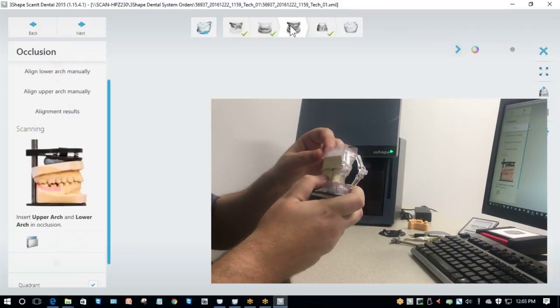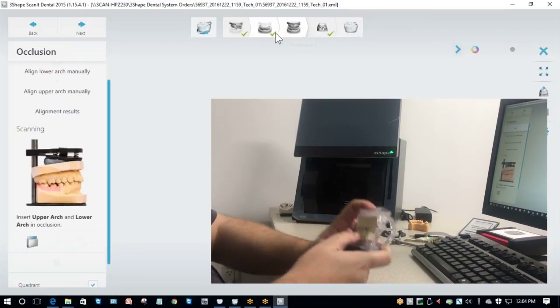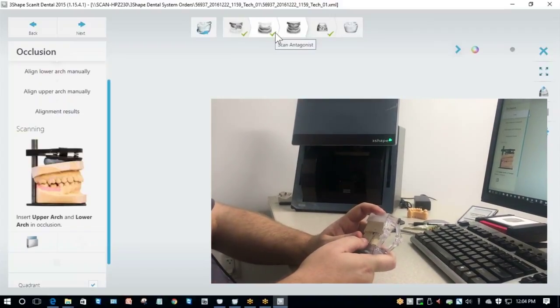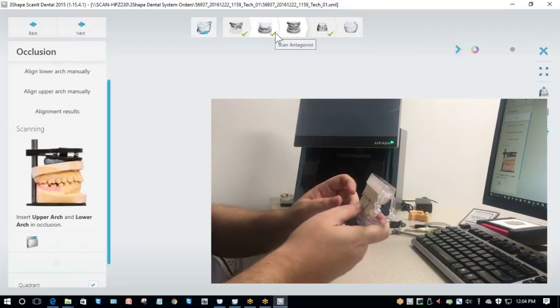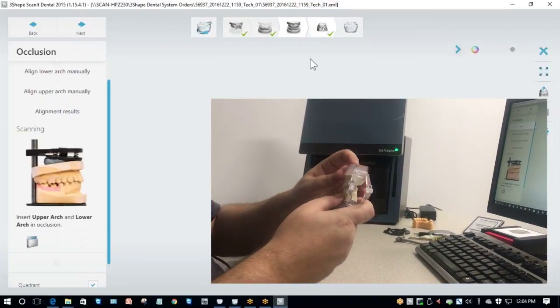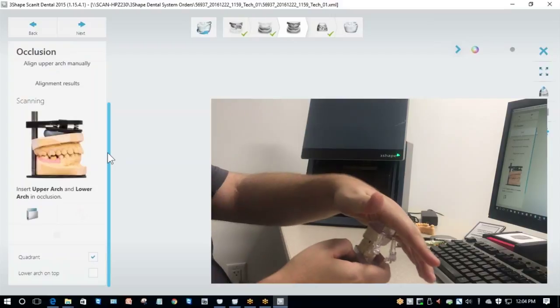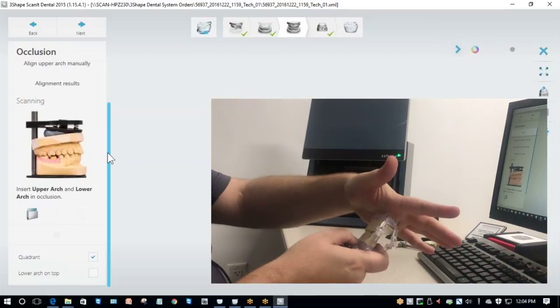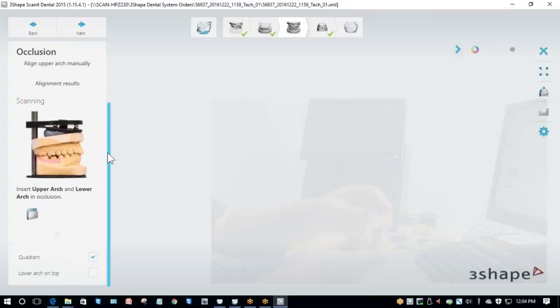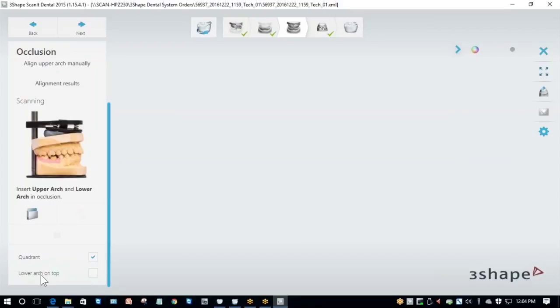In some situations, you need to be careful because the putty can actually lift your die. If the putty does lift your die, make sure you push the die back down. Also, on this case, I'm scanning the upper model as my working model. Because the upper model is my working model, I'm going to make sure that I keep the upper model on bottom at all times to prevent the die from falling out during the scan. Because I put my upper model on the bottom, it's really important that I tell it that my lower arch is on top. This will help it do the automatic alignment later. If you notice that your model isn't quite stable or the opposing is sliding around, it's okay to use hot glue or a little bit of putty to hold the bite in place.